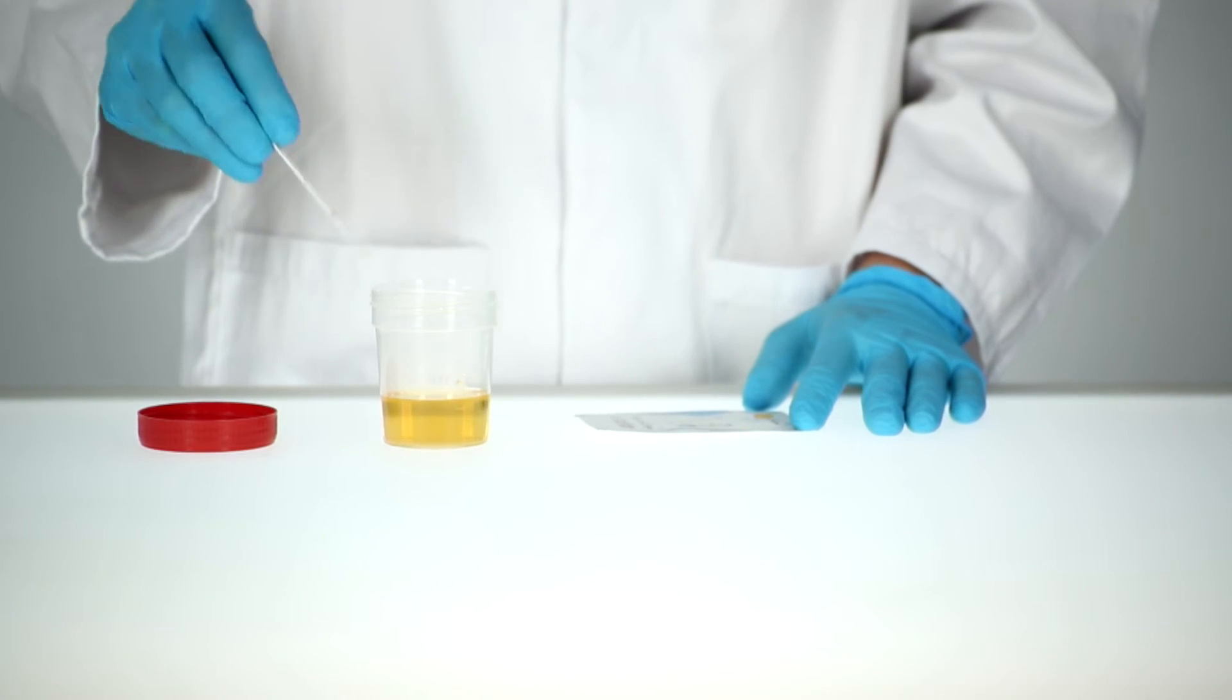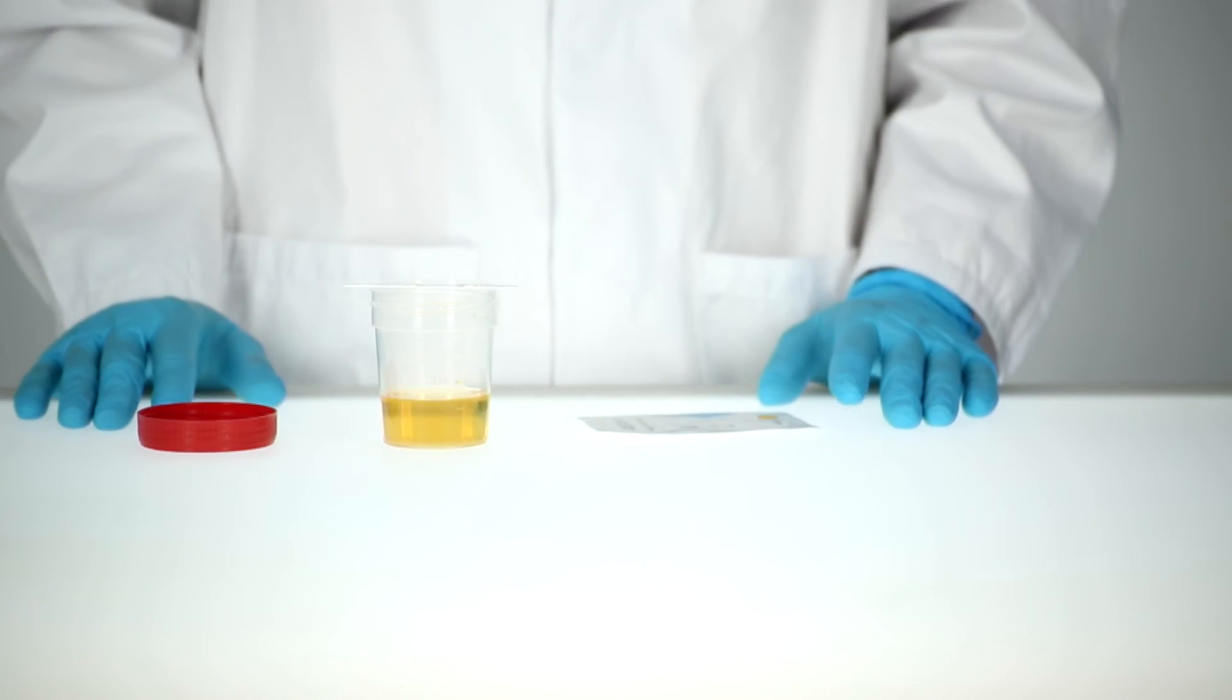Remove the test strip from the sample and place it on a clean and flat surface. Read the results after 5 minutes, but not longer than 8 minutes.